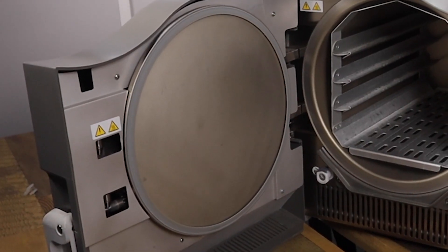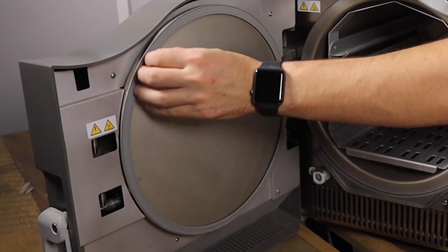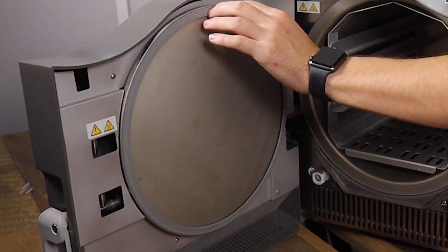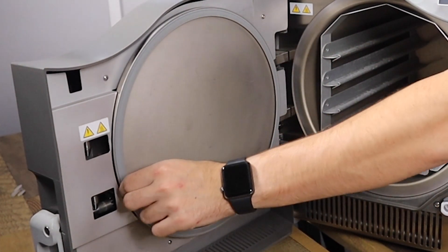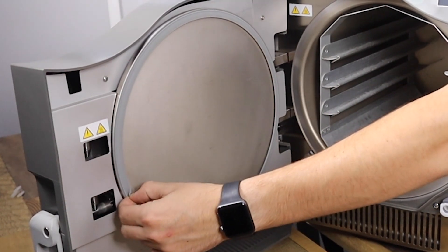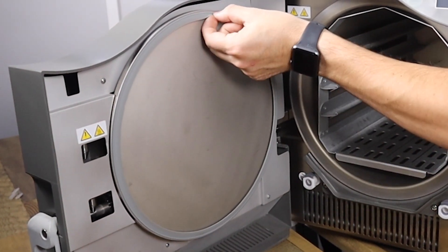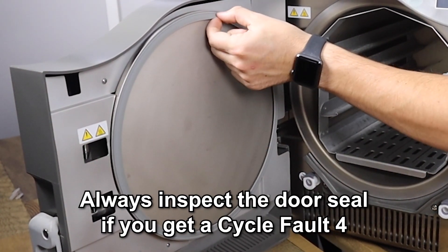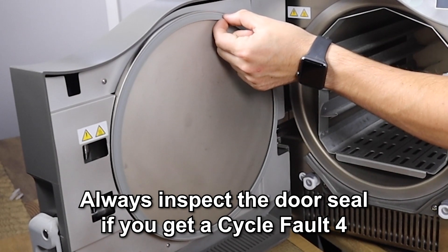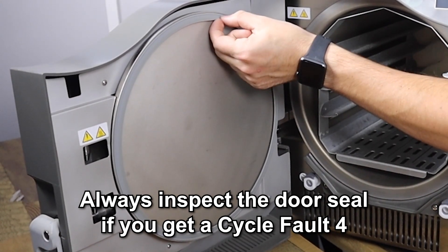These issues can be as far as the door seal protruding in some areas, not being seated properly, or it being ripped and torn on certain areas like this. You should always visually inspect the seal if you receive a cycle fault 4 to make sure there's no holes, tears, or that it's not seated properly.